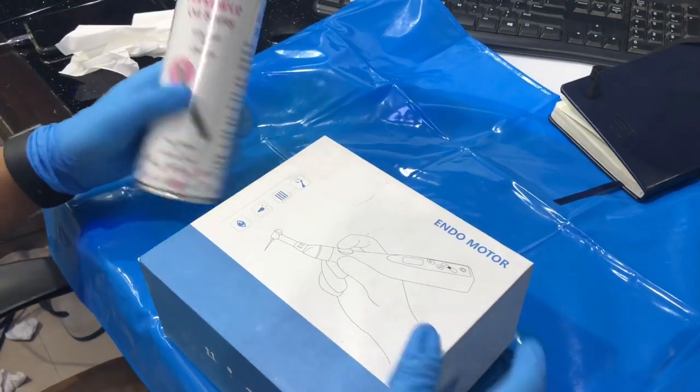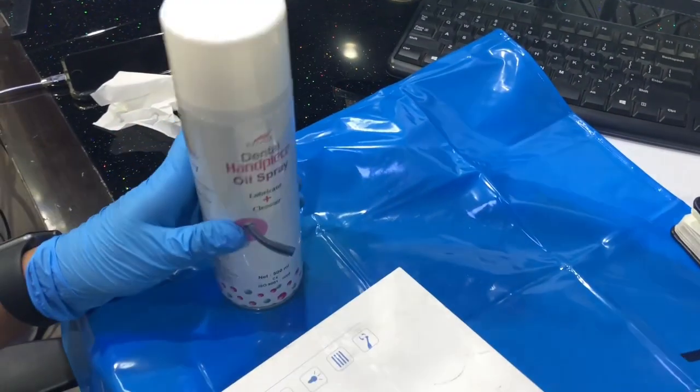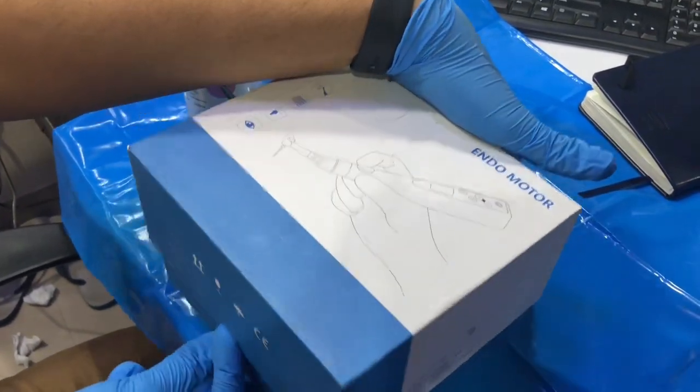We have over here the handpiece NMD handpiece spray, which is a high-grade handpiece spray and universal for all sorts of handpieces.